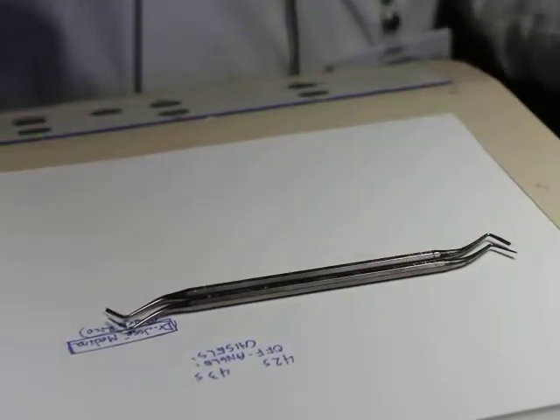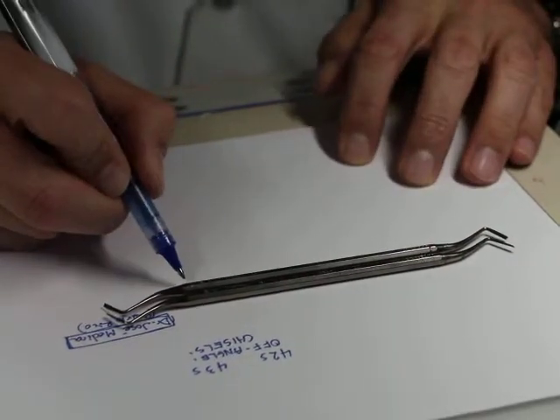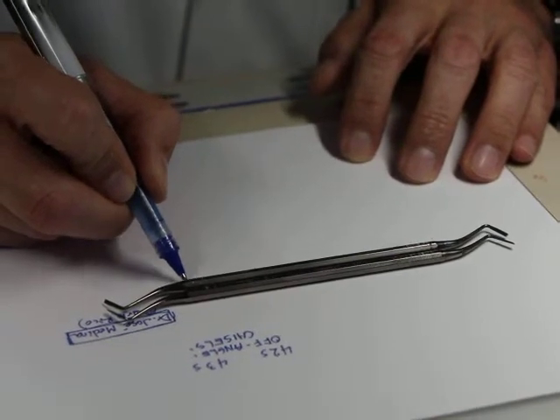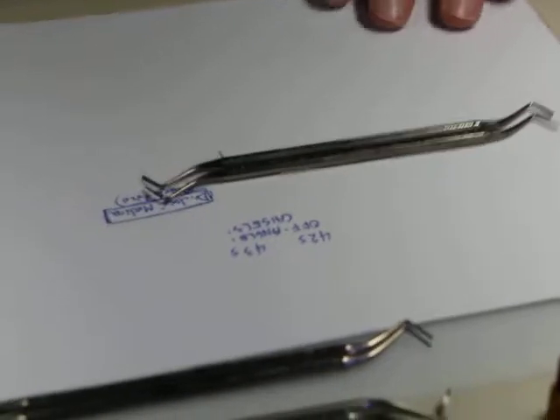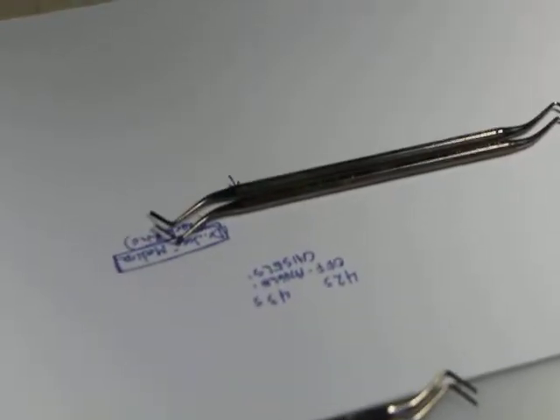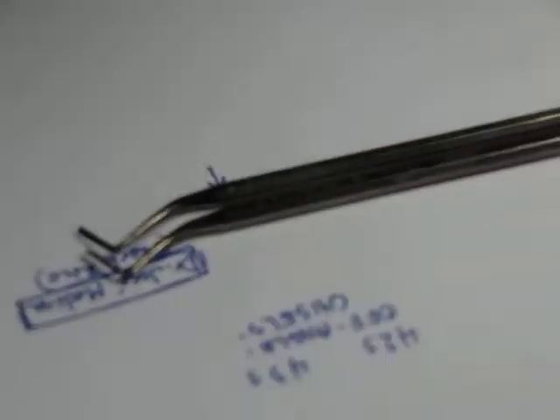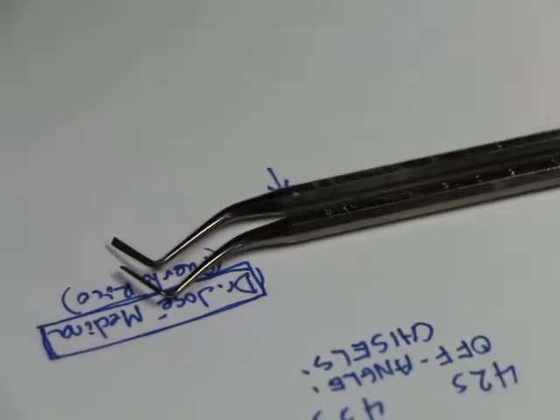And some of you may have been lucky enough to have this, but the 43S always has a band around it, where the 42 doesn't. So you can see them quickly on the bracket table and know which one's which. Okay?